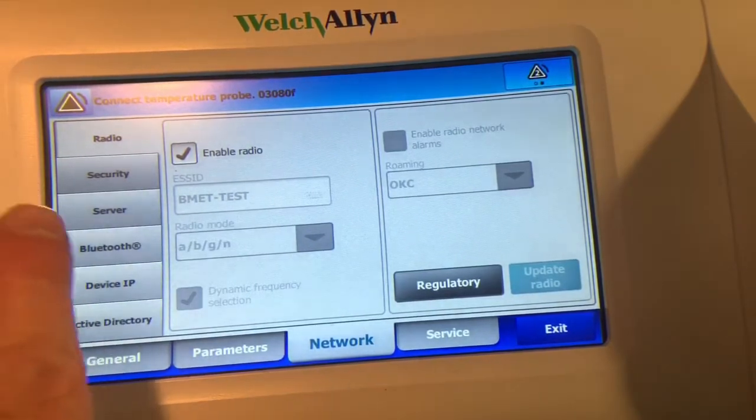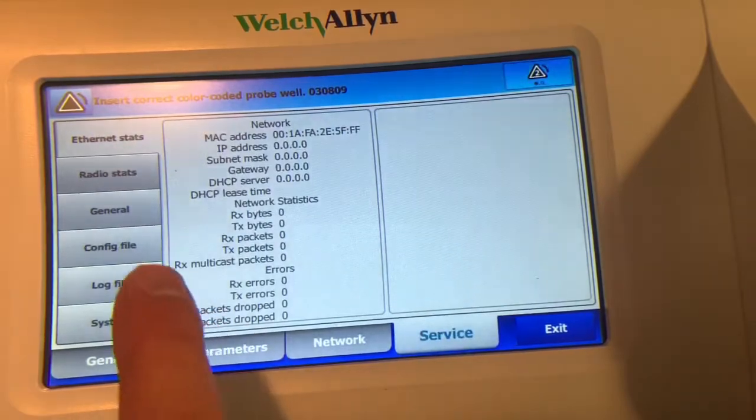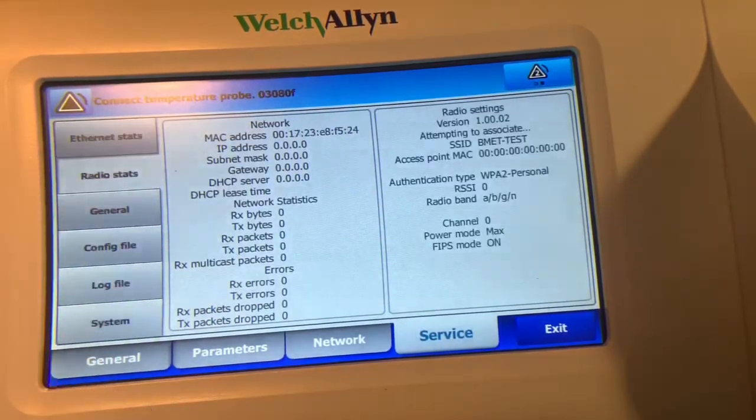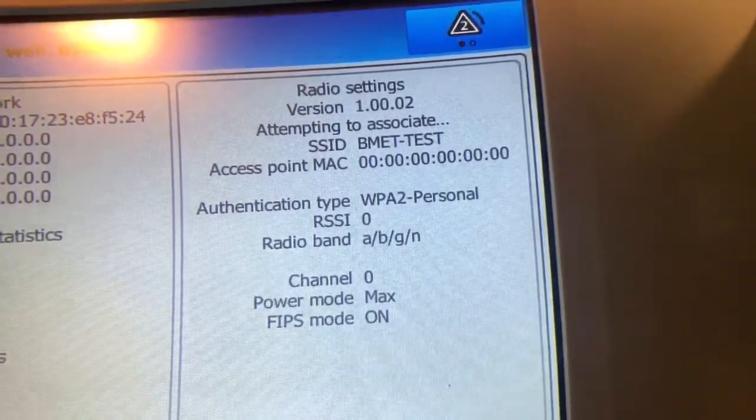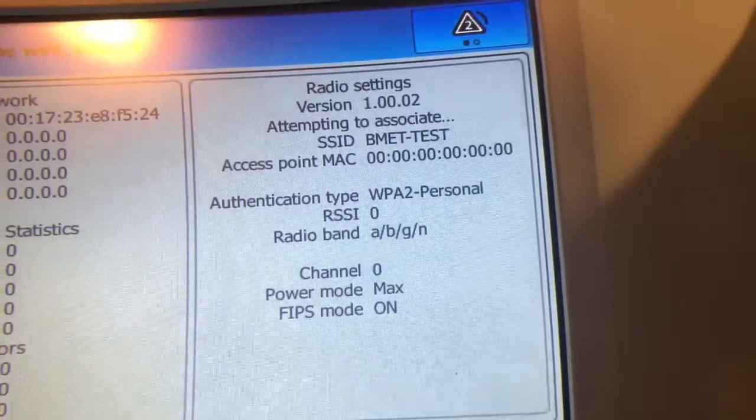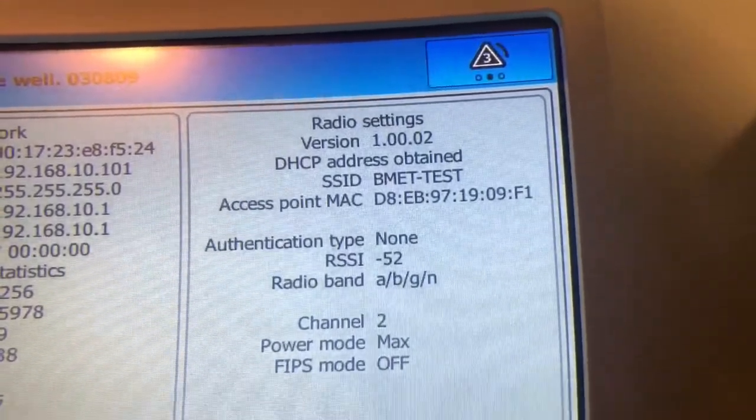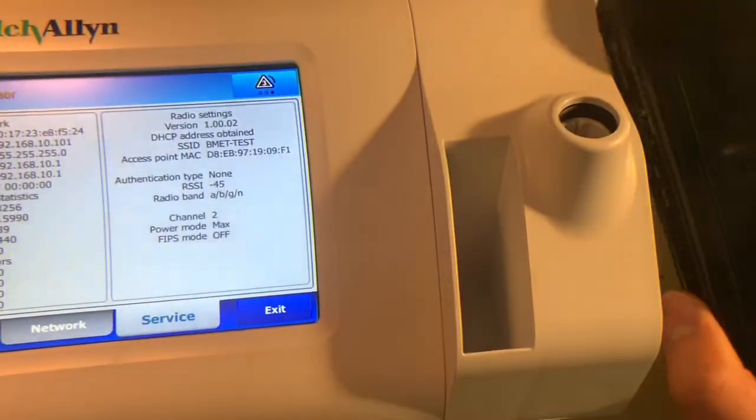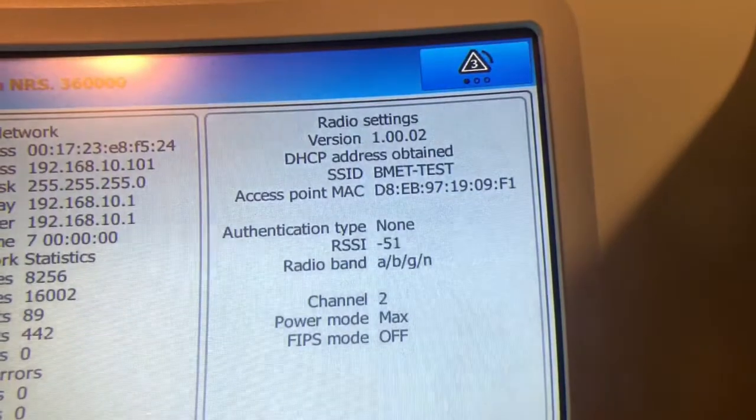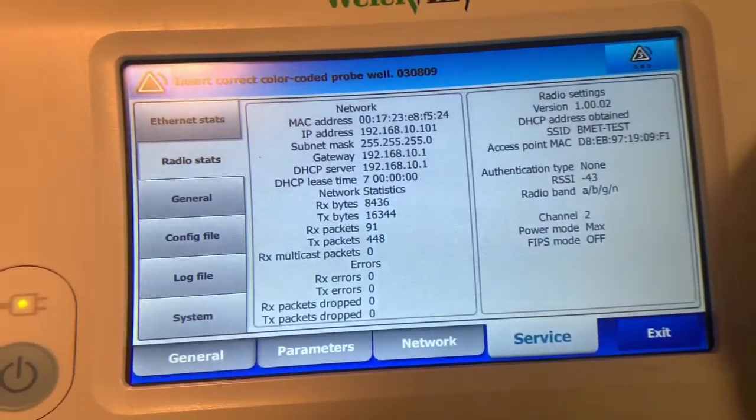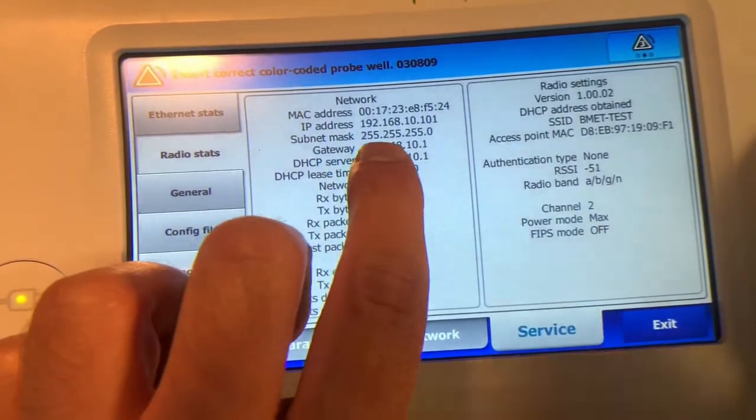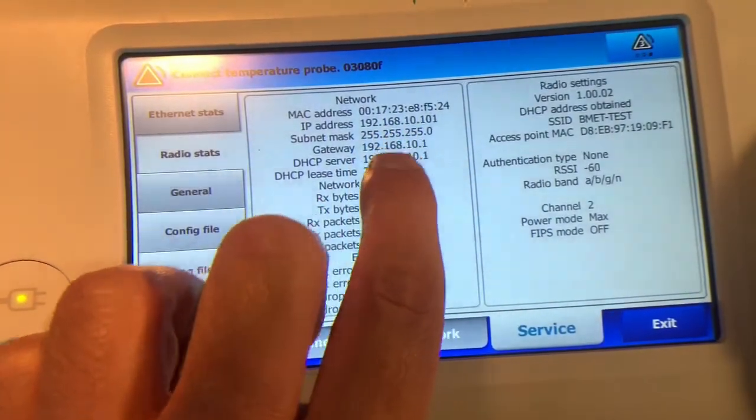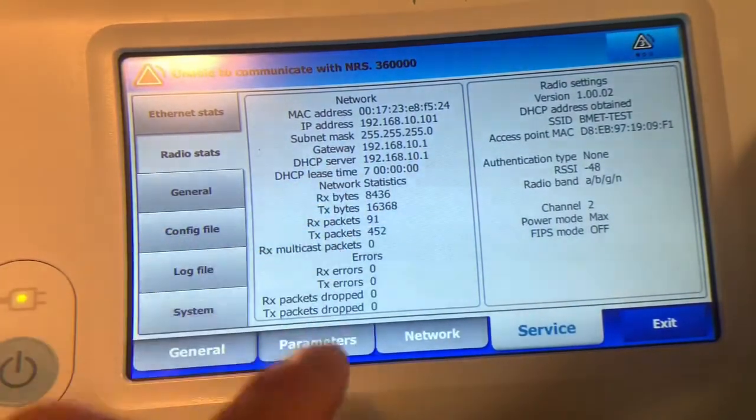I can go over to service and radio stats. And you can see here it's waiting to associate with that network. So you can see right here, it is connected to this home router right here. It does have a valid DHCP address. So if I go back to here, you can see it has a unique name or IP address that was given to it via DHCP.